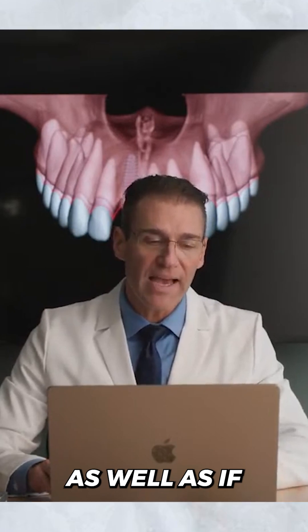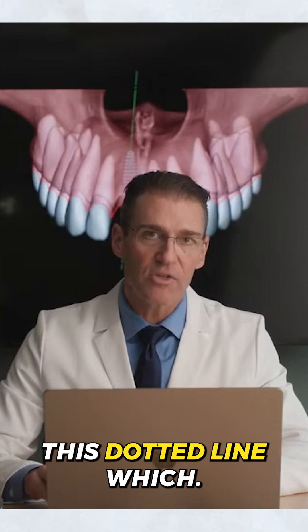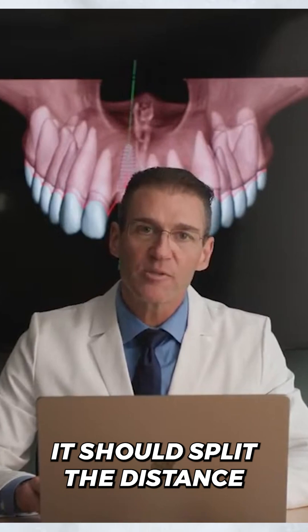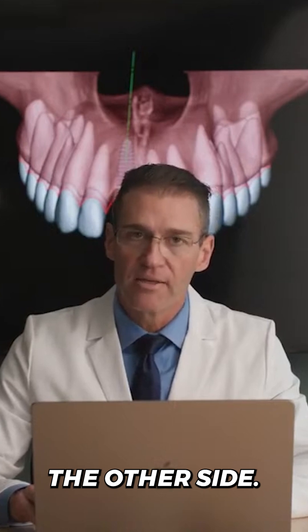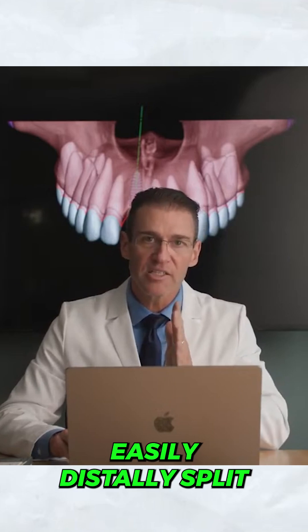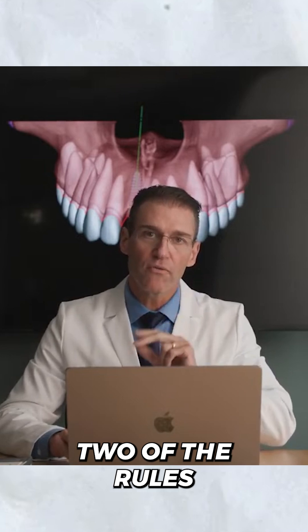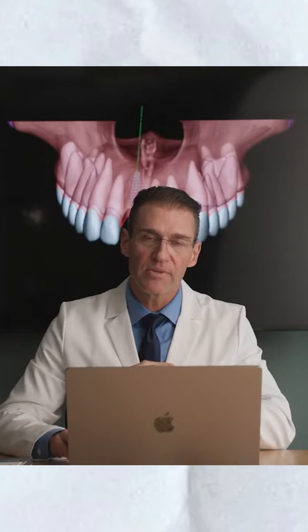And if I draw this dotted line, which represents the center line of the implant, it should split the distance between the lateral and the central on the other side. So if it's mesially-distally split, and it's three millimeters apical, those are two of the rules we use to get the implant in the right position.